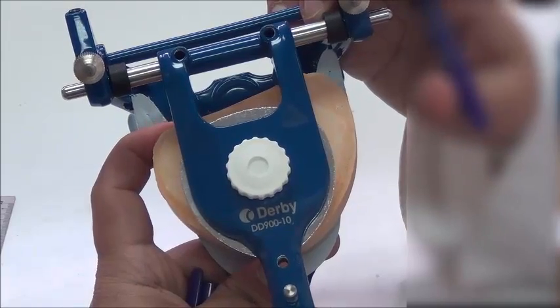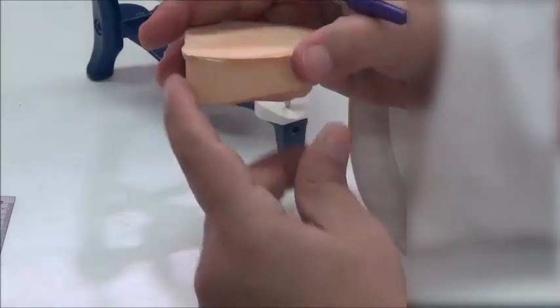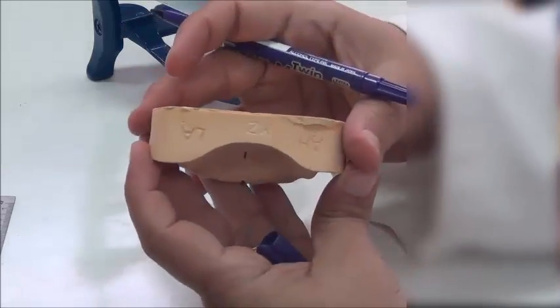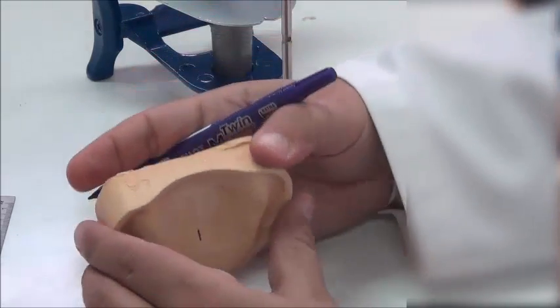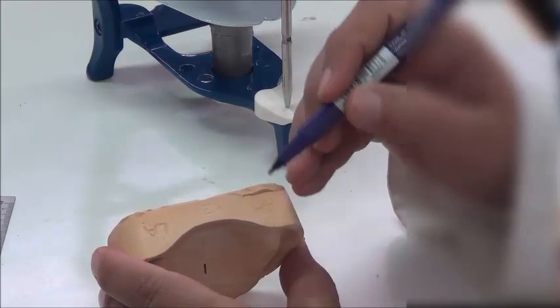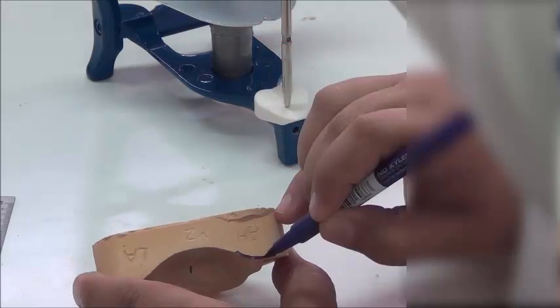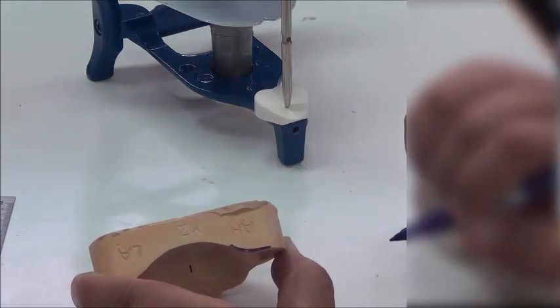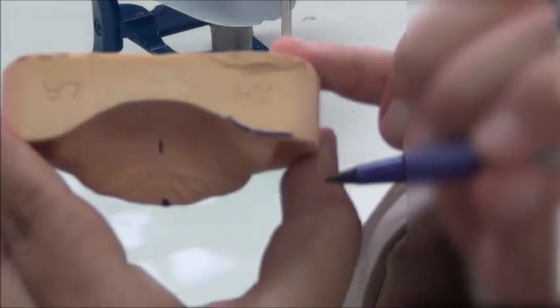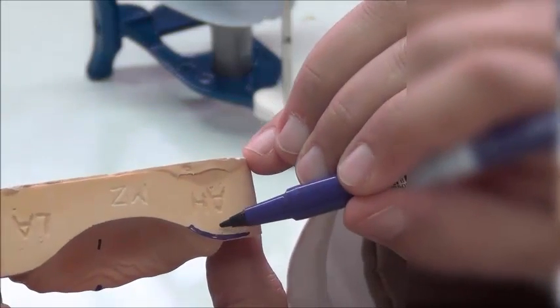So I want to make sure also that the heel area in the posterior, which is this area, we call it the heel area, is also centered around the cast. So what I do, I need to draw two posterior lines. My posterior lines are those around the maximum bulge of the crest of the ridge. So if I'm looking at this cast vertically like this, I draw it first on the posterior part of the cast, and then I'm looking closer, where is the crest of the ridge? So if this is the crest of the ridge, over this crest of the ridge I draw a line.